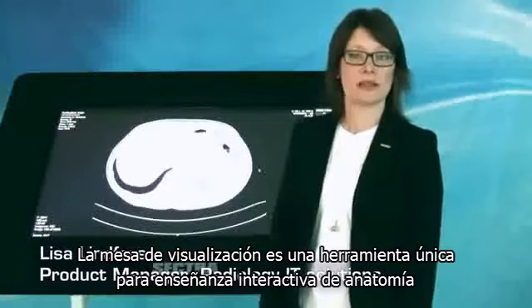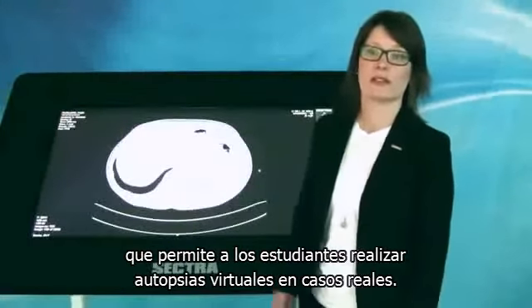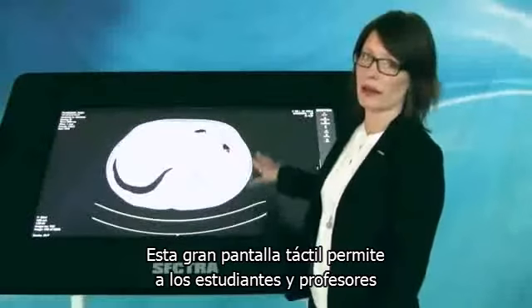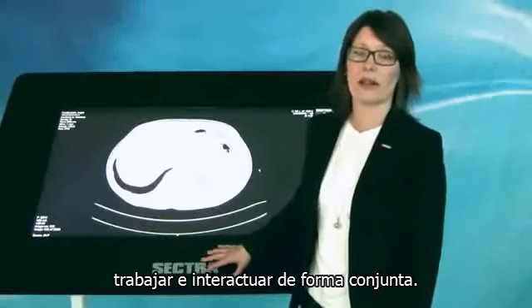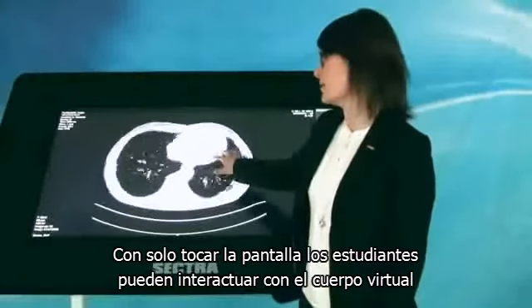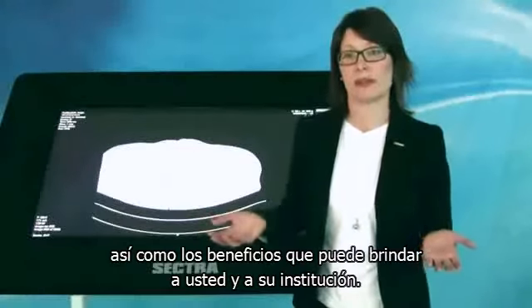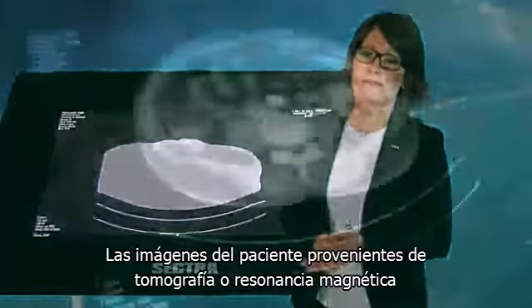The Visualization Table is a unique teaching tool for interactive anatomy education as the students can perform virtual dissections of real-life cases. This is a large multi-touch display allowing the students and medical professionals to work and interact together. By simply touching the screen, the students can interact with the virtual body, supporting the tactile memory. I will now show you the visualization table and the benefits it brings to you and your hospital or institutes.